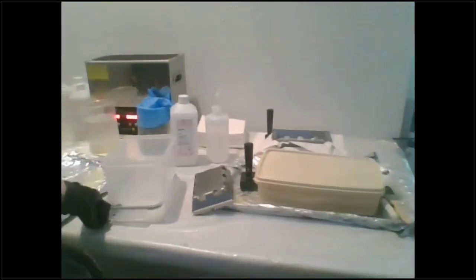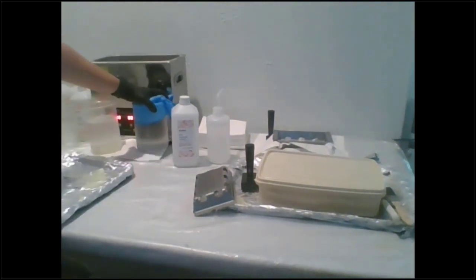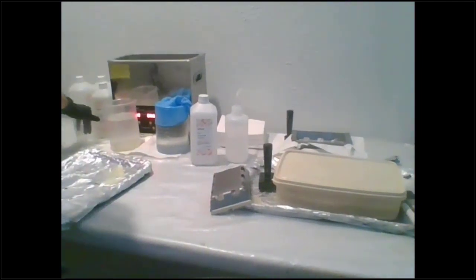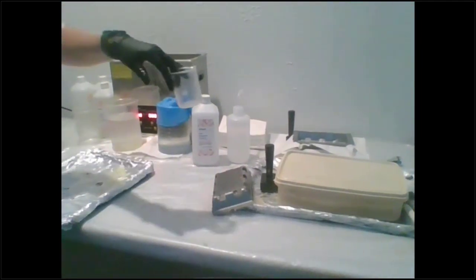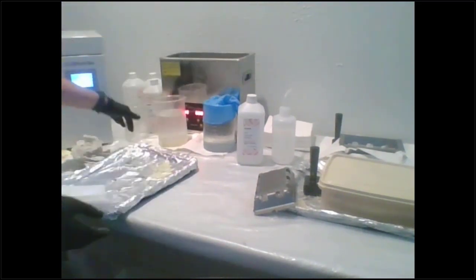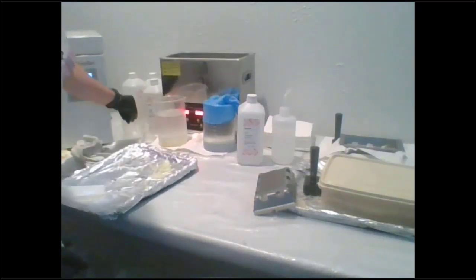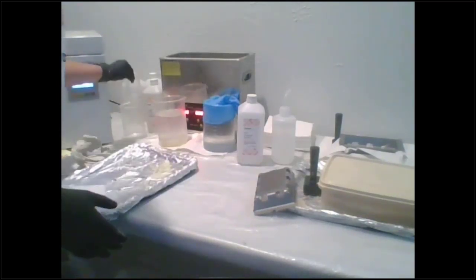And then after my first bath of 3 minutes, you put it in a perfectly clean bath. So if you're planning on just doing crowns or something like that, just use a little beaker. So you're not using much IPA at all, right? You'll just cover the parts. Like for these surgical guides, I would have used this beaker here, so I could use as little IPA as possible.